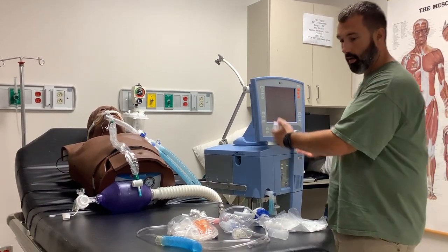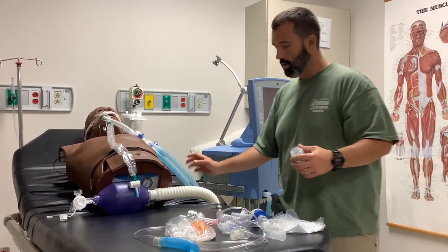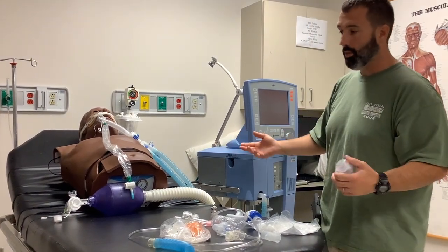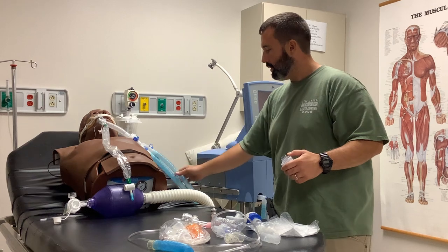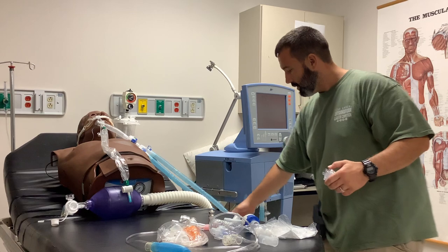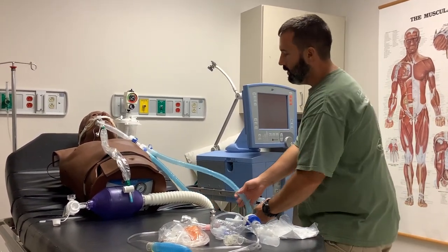That's just because of whoever put it on - I don't say they put it on wrong, because technically this is a dry circuit, so it really doesn't matter. If it were a wet circuit and you're truly putting your temperature probes in, at that point it would matter. But you do have an inspiratory limb and an expiratory limb. For our purposes, this is actually going to be the inspiratory limb, because that's what's attached to the ventilator on the inspiratory side of the machine.